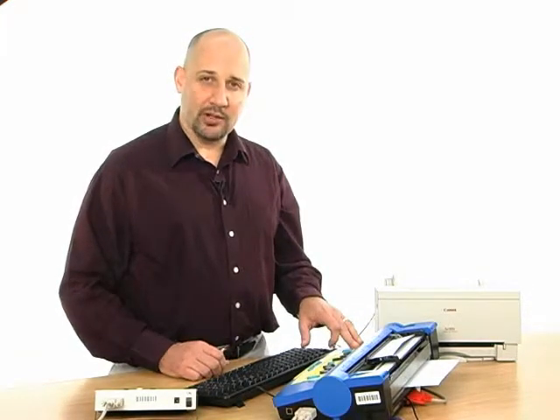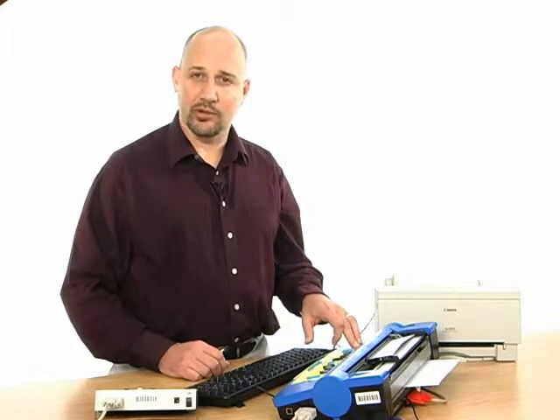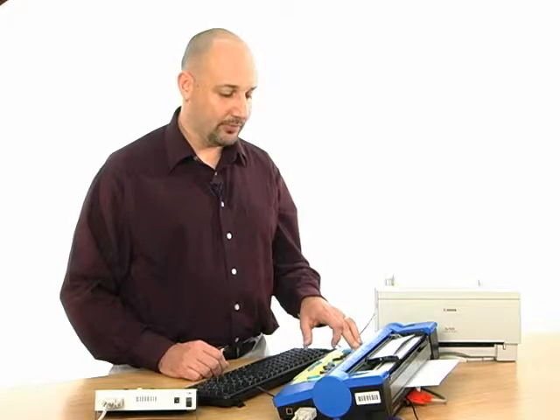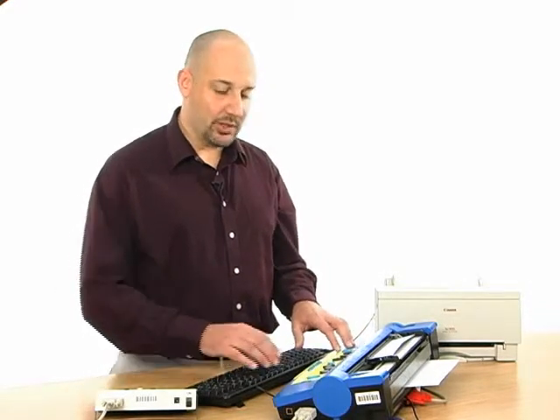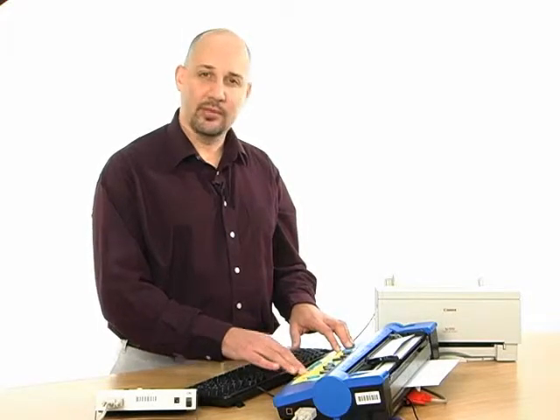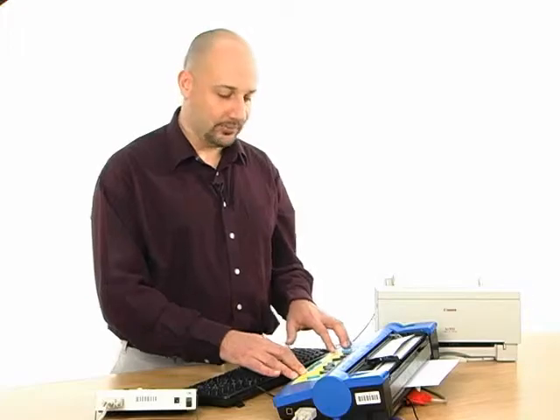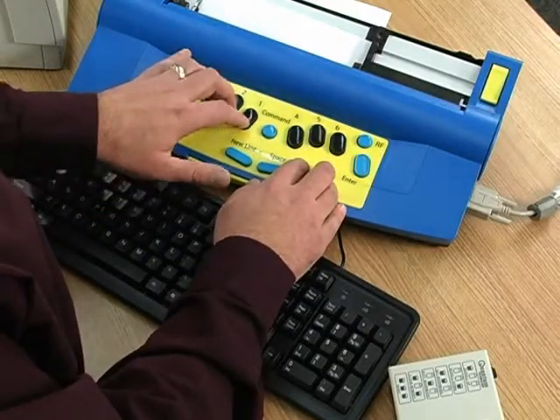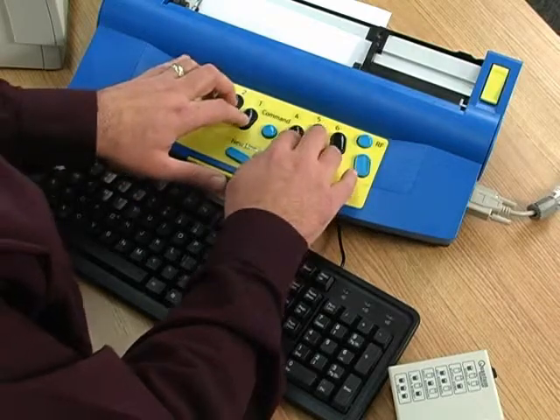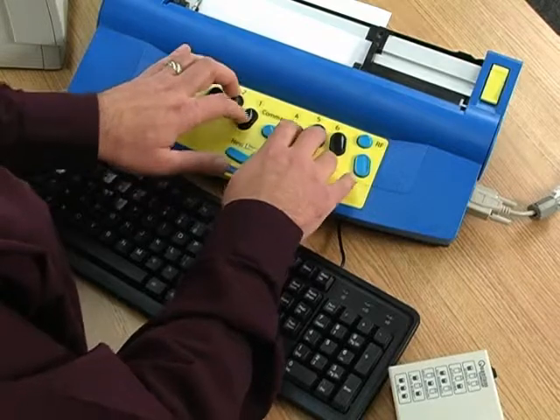To program the left function key with forward translation, we need to program the FE command, which is our command to turn on forward translation. To program that key, we issue the command KBLF, a space, and then the command we want, in this case, FE. Command KBLF, space, FE.